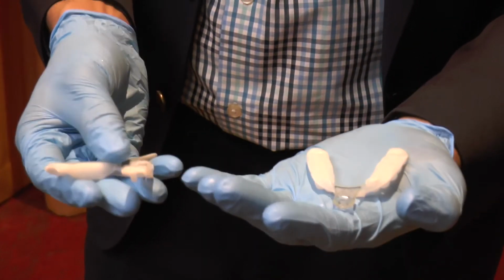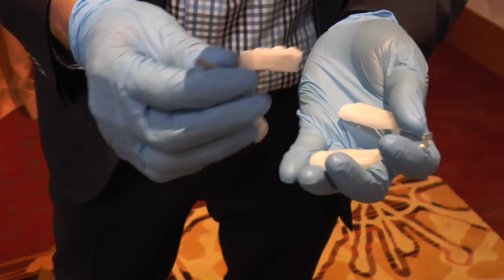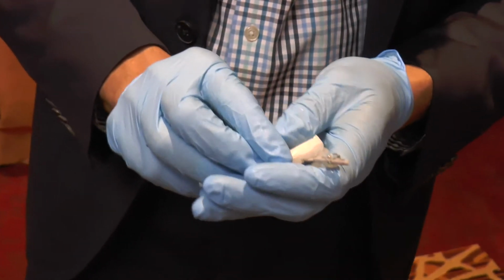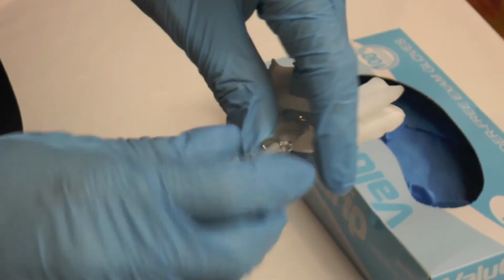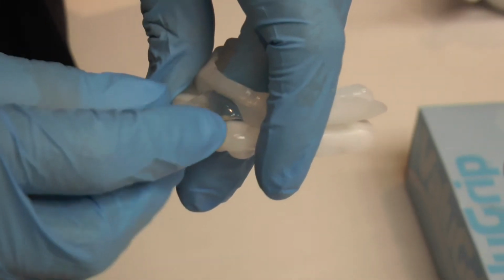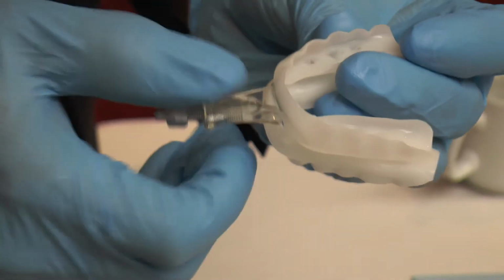So now that we have the upper and lower trays, we're going to go ahead and assemble it. To assemble it, you'll basically take the flat surfaces and approximate them. You'll take the lower advancement shaft into the upper beak, and then you go ahead and add the little screw that allows the advancement to take place. So the key is just to get the screw on there and not to completely dial it into place. We're going to determine exactly where to dial it once we've put this apparatus back in the patient's mouth.